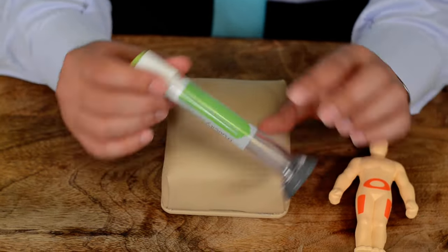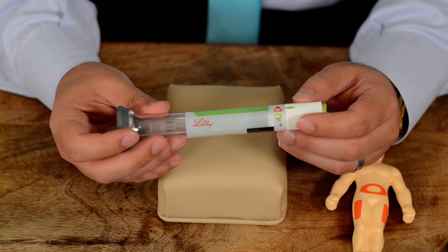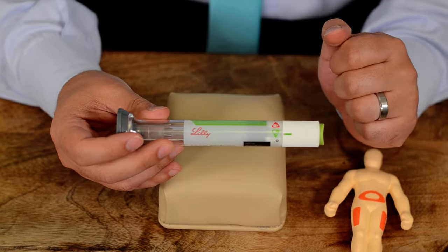All you have to do is to unlock. When it's locked it's red, when it's unlocked you turn the knob to green, and now you're unlocked.